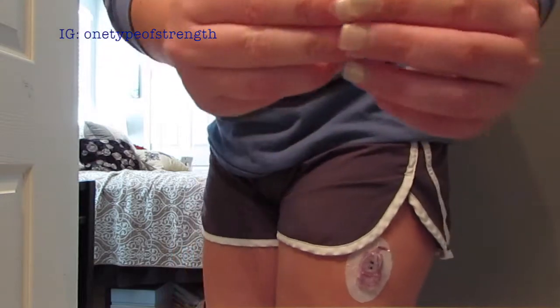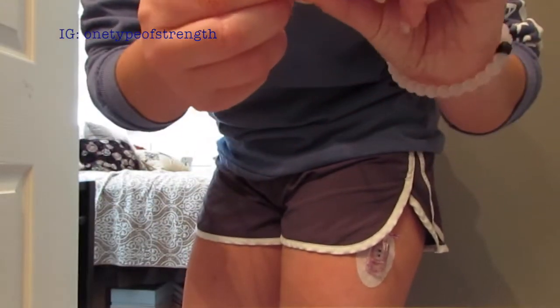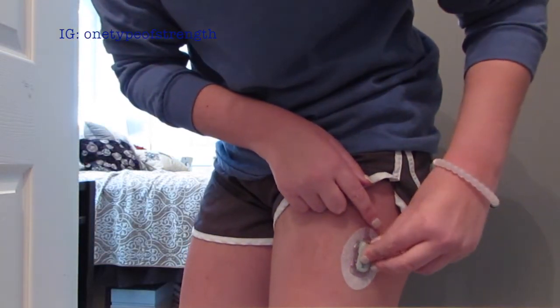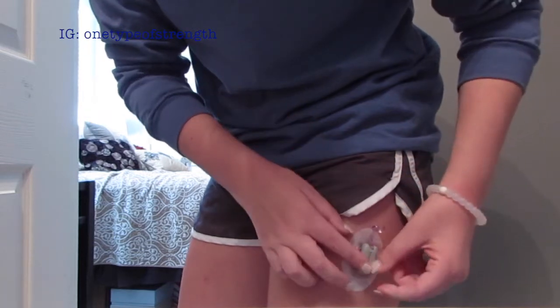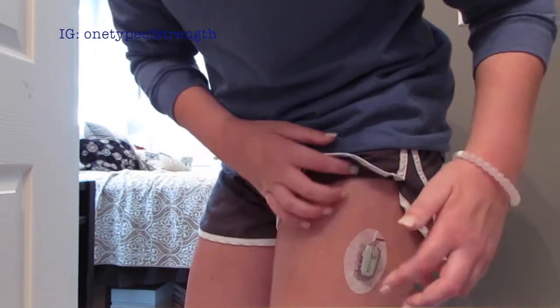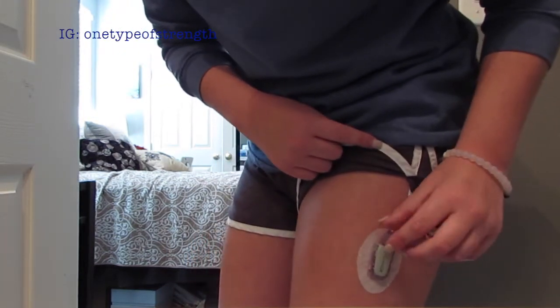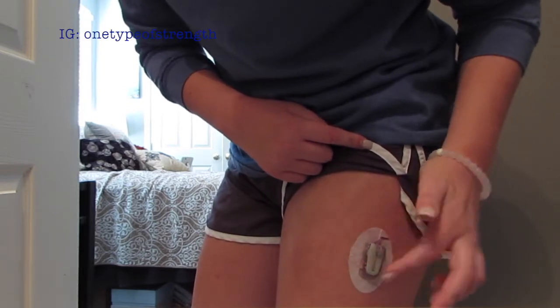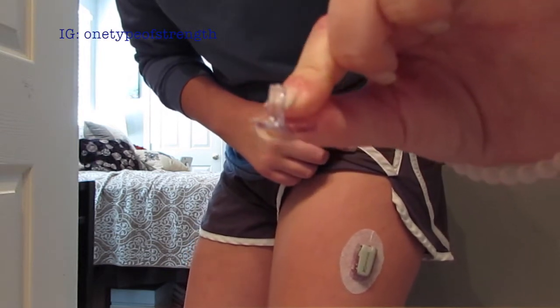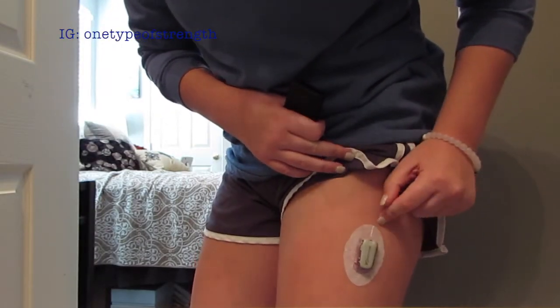Now I'm going to take the transmitter — this is what it looks like on the back — and place it so it fits in there perfectly. You will hear some snaps. I place it in there and then take the top piece and push it in. The whole transmitter is locked in. You can push on it to make sure it is in there nice and tight, then take that little piece and throw it away.